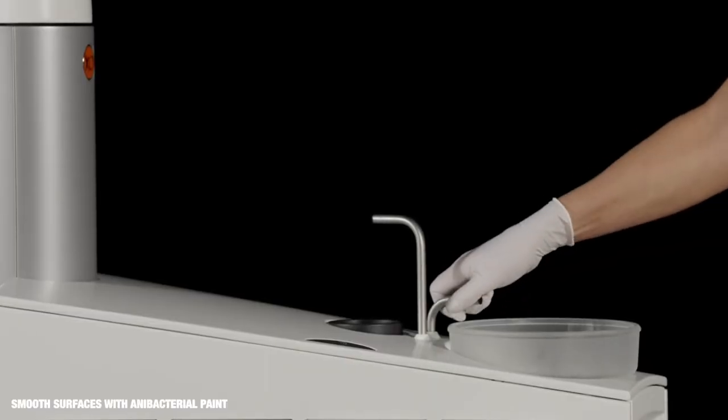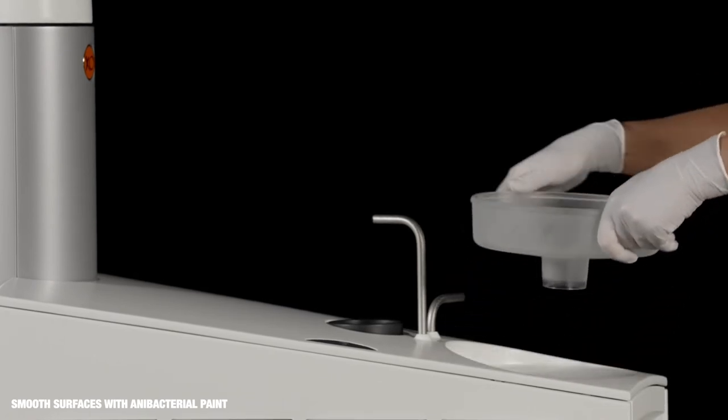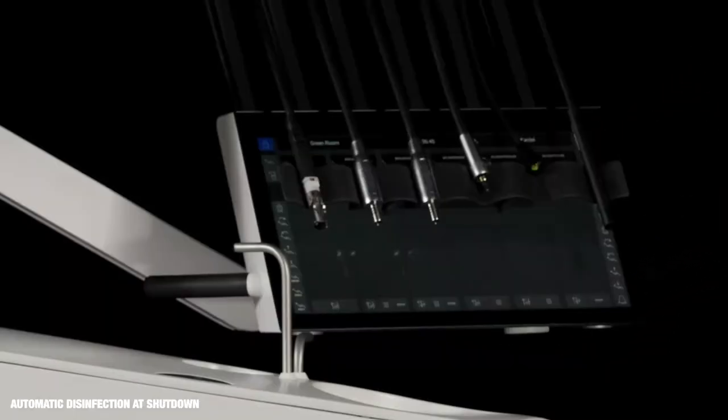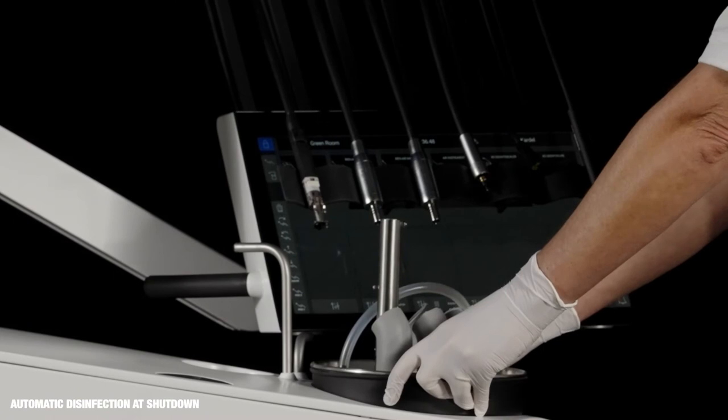Remove the cuspidor and place the water bearing instruments in the instrument holder.